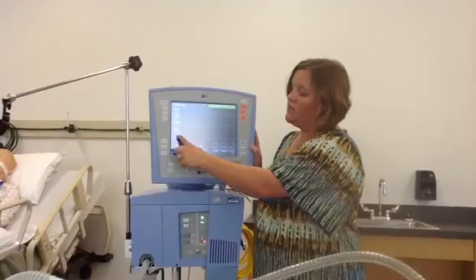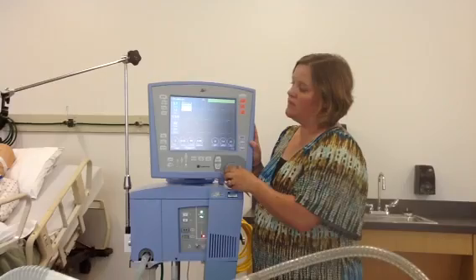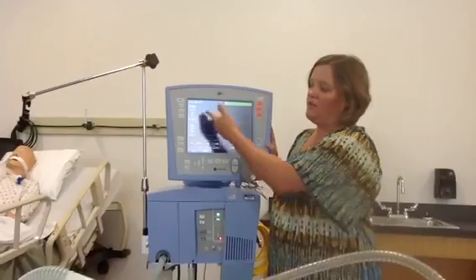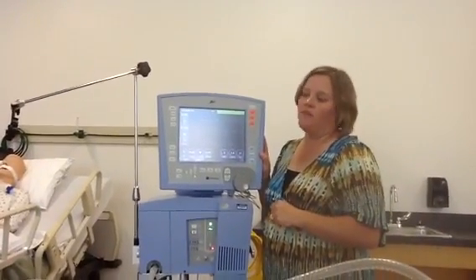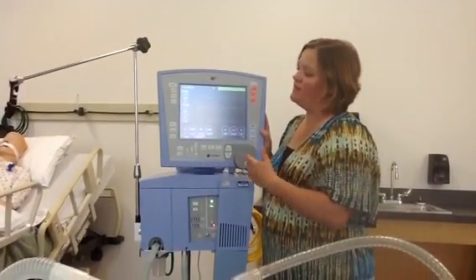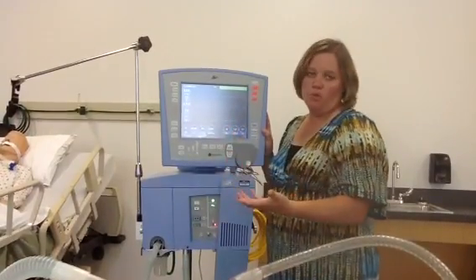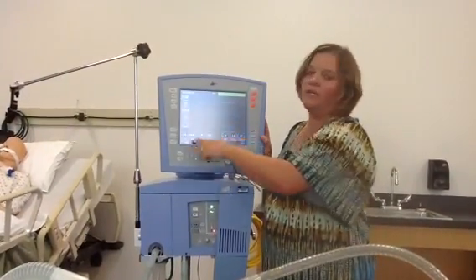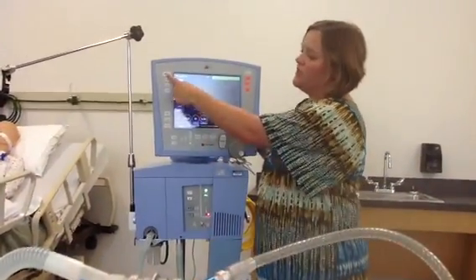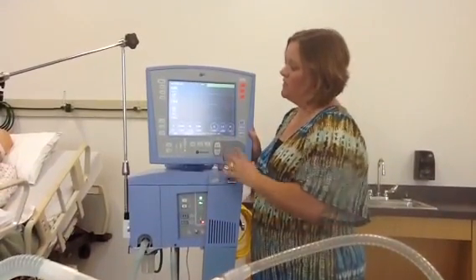These buttons here are actually very changeable. If you touch one and want to see something else there — let's say spontaneous tidal volume — you can touch it, turn it, and change it to whatever you want to see. All of this interface is very user friendly with the ability to touch, turn, and change whatever you'd like to see. Most places set it up to match what their ventilator check needs to read. The main screen is a great screen — touch that soft key and you get right back to this page.